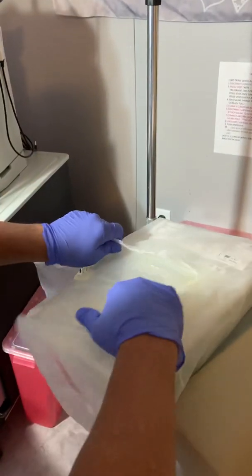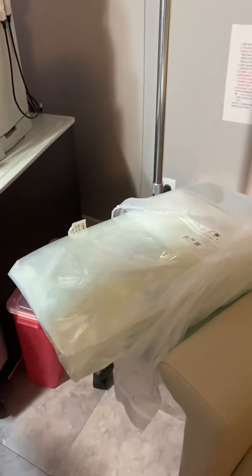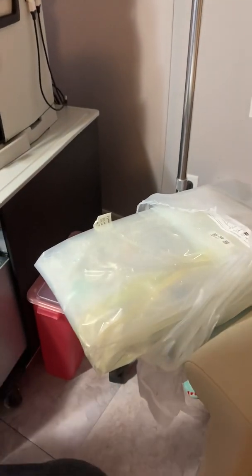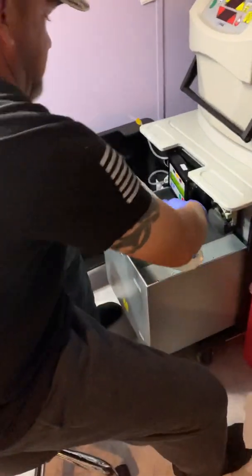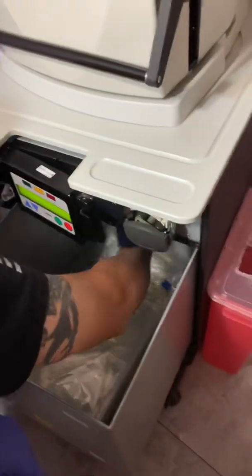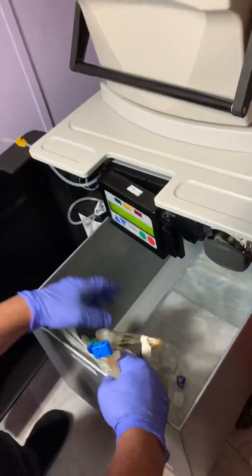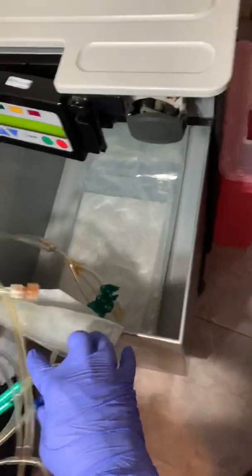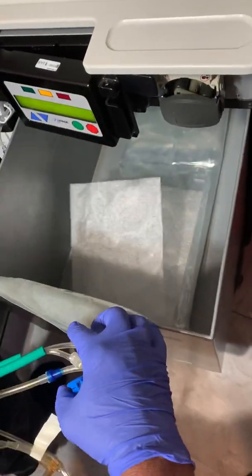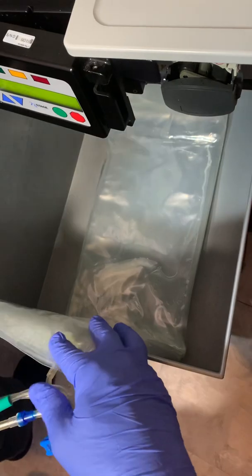Open the sack, pull this thing all the way out. Lay this in here in the middle. You can unfold it so the lines are at the top. I always pull it more the way out like this. Take the trash out. Make sure it's in the middle totally evenly.